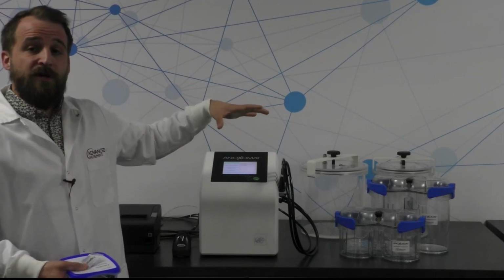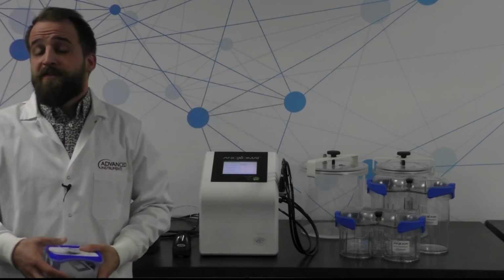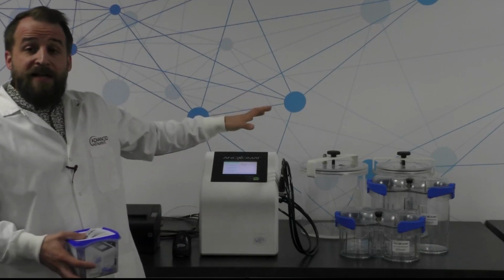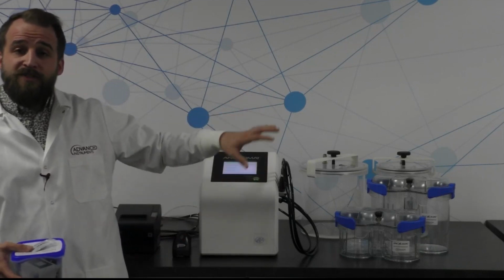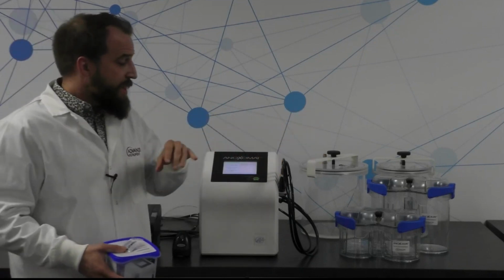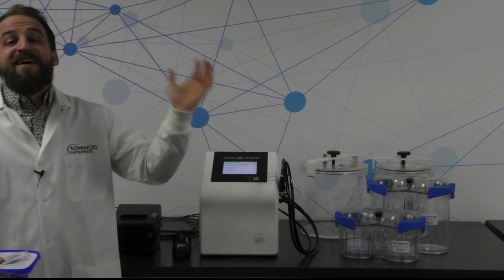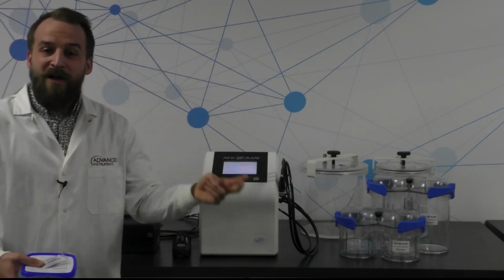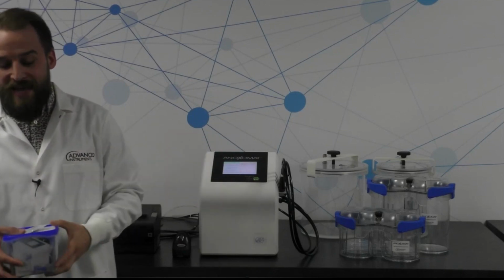So this instrument does require an external gas source that you get from a medical gas provider like Airgas. It will take the gas from the external gas source, create the anaerobic or microaerophilic environment in the jar, and then it will evacuate again, refill, evacuate again, and refill one time. So it goes through this whole process 3 times and then one last time.